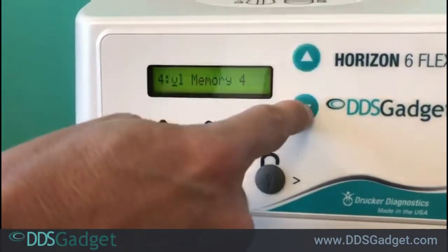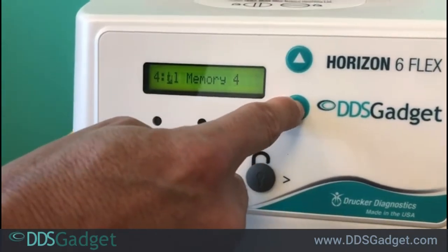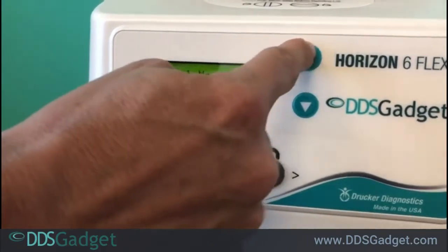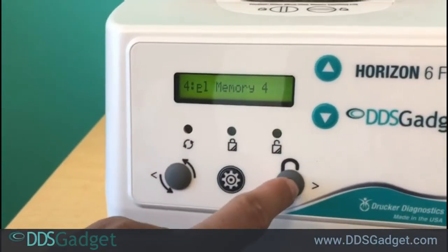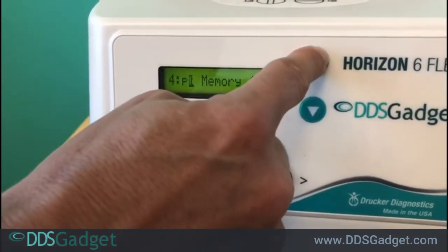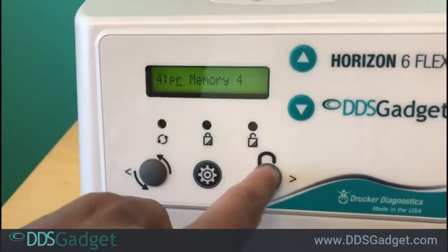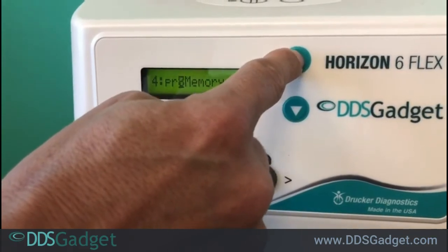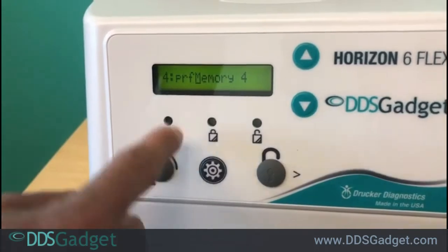The next setting is to name the cycle if you want to. You name it by using the up and down arrows to choose the letter. Let's say we want to call this PRF. We go to P, then once we choose P we use the right arrow to get to the next letter, then we do R, move to the next one, then F.